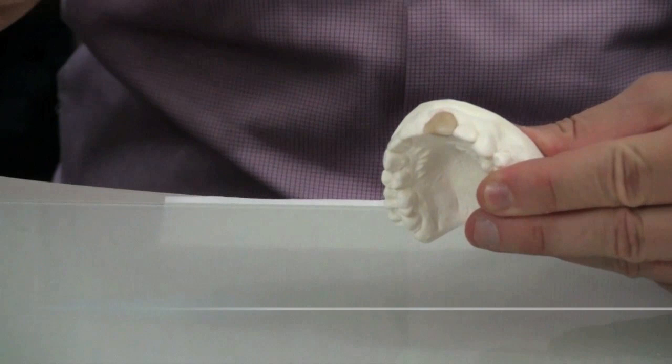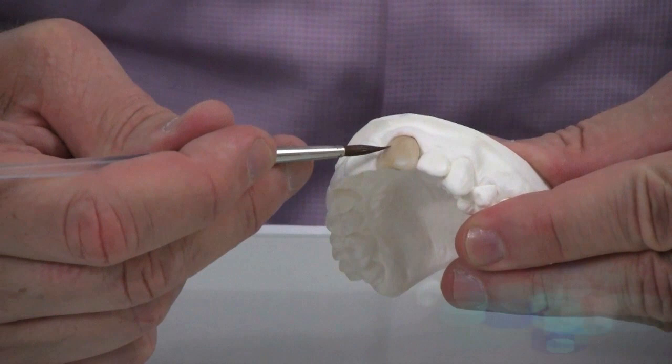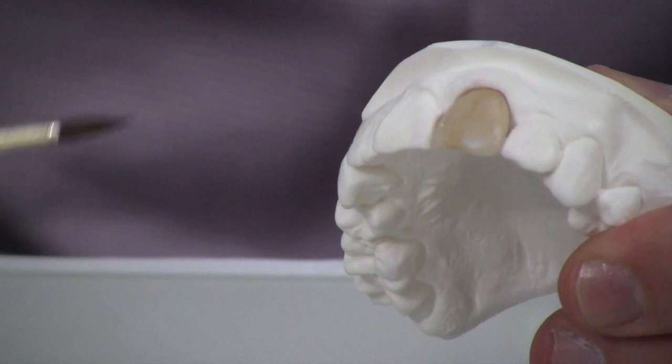here, and very shallowly I had it on the labial surface. So we're going to go ahead and do some minor modifications now, some grinds, and then prepare for a stain and glaze just for a two-powder build-up.